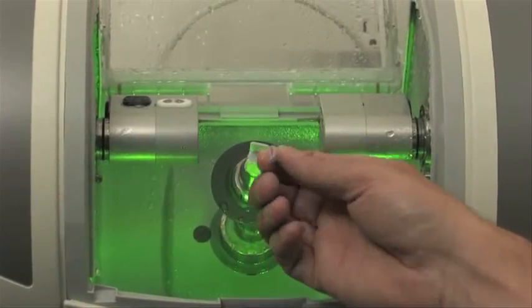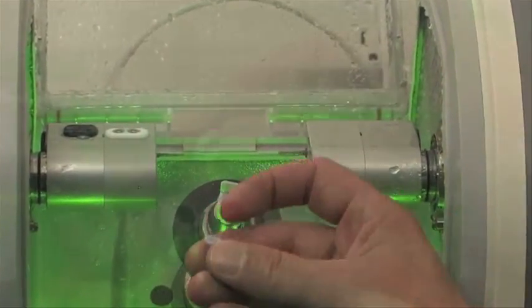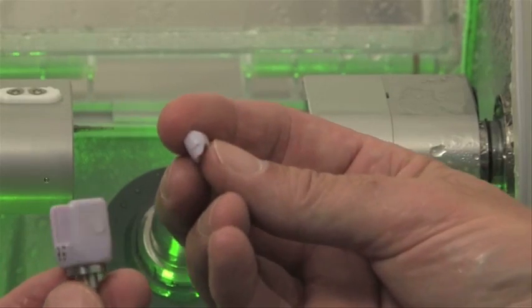The restoration is complete in minutes with only a small sprue. This is where the crown was last attached to the Emax block.